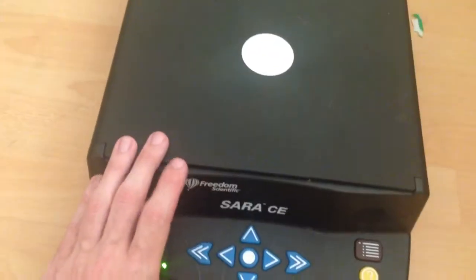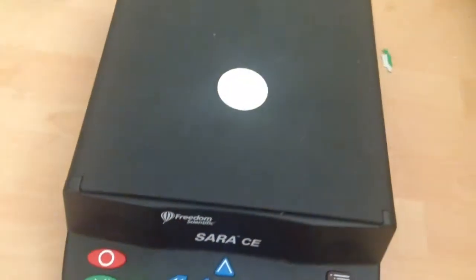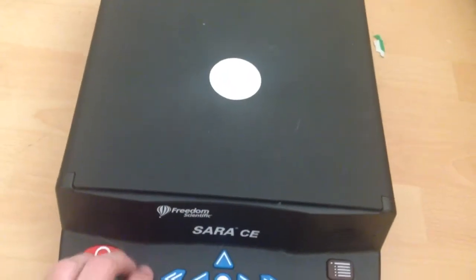To use this thing, if it's a dark room you can turn the camera light on — as you can see, the top is now lit. Turn it off again — that's a toggle. On some machines it will just flash so you can get it to do whatever it needs to. Let's get this thing to read something useful.